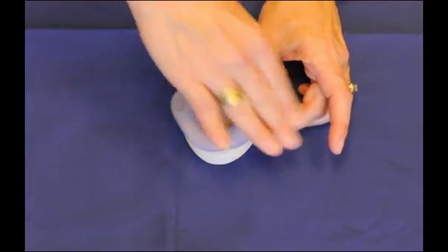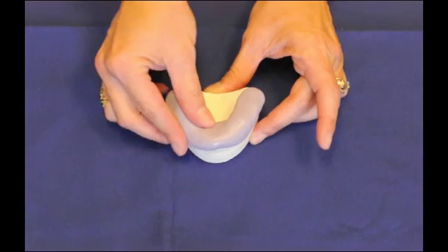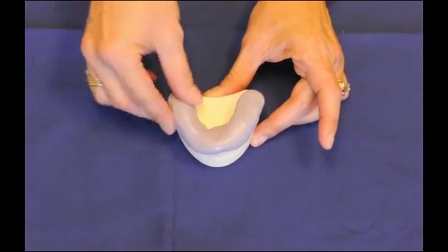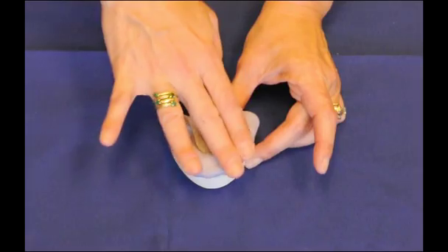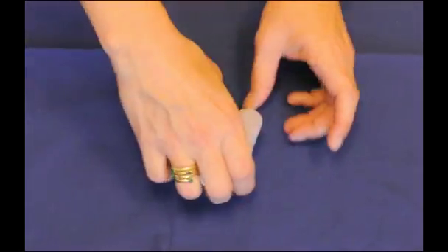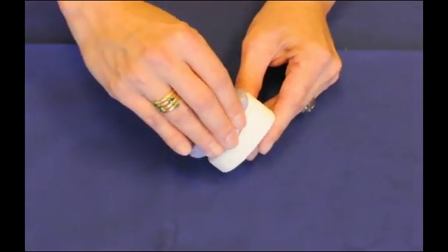What I'm trying to do is get a uniform thickness of material on the occlusal surfaces and on the buccal and lingual surfaces. The flexibility or rigidity of the material are dependent upon the thickness of the material.